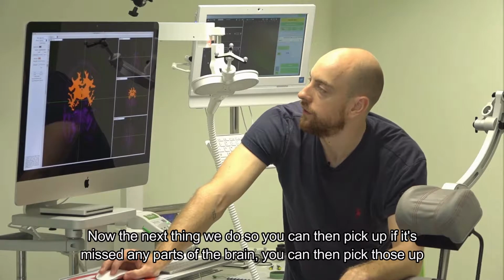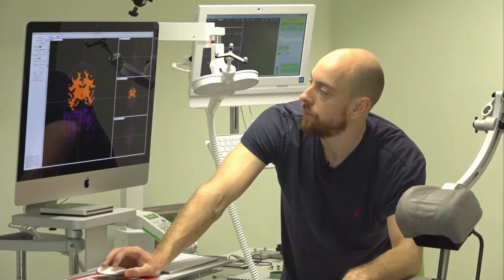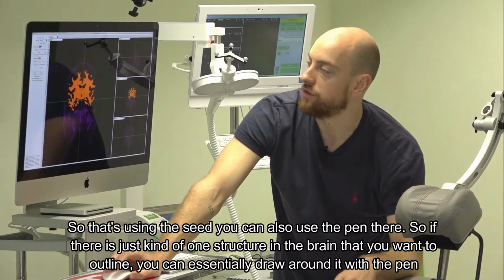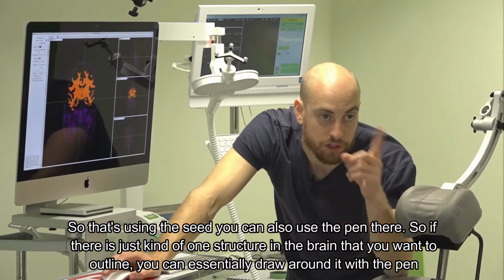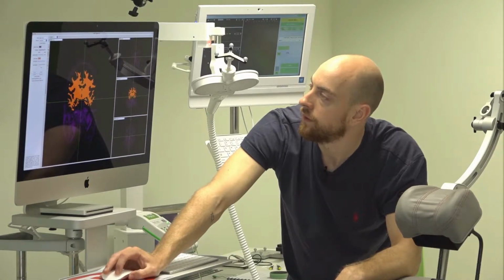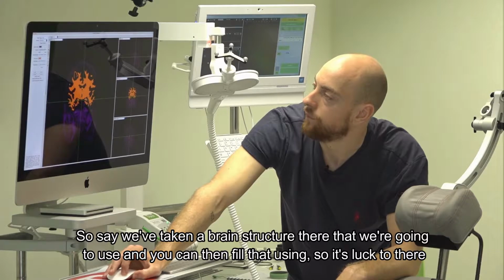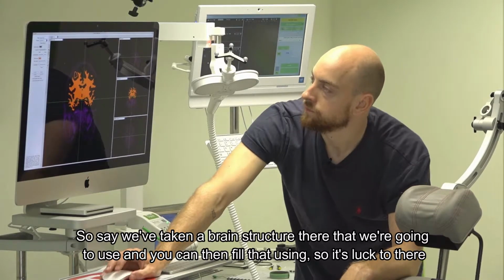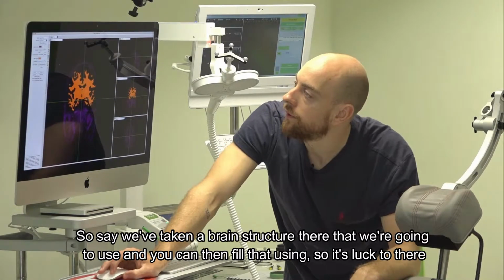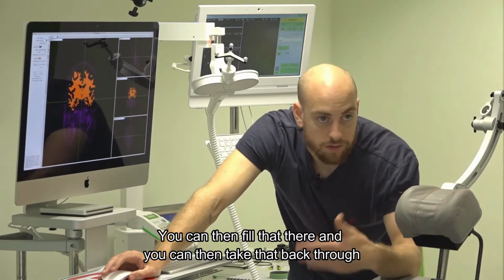Now the next thing we do, you can then pick up, if it's missed any parts of the brain, you can then pick those up. So that's using the seed. You can also use the pen there. So if there is just one structure in the brain that you want to outline, you can essentially draw around it with the pen. So say we've taken a brain structure there that we're going to use, and you can then fill that using, sorry, it's that tool there. You can then fill that there.